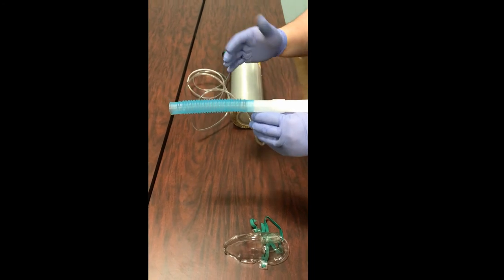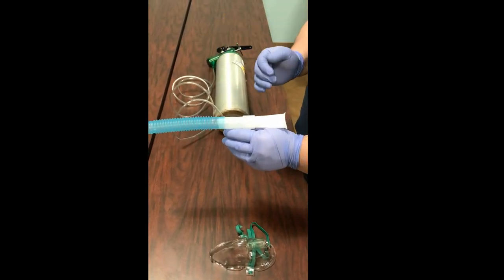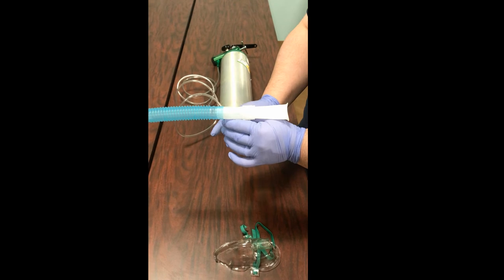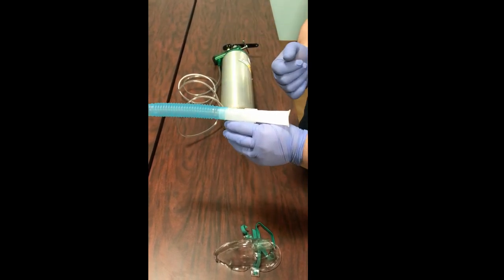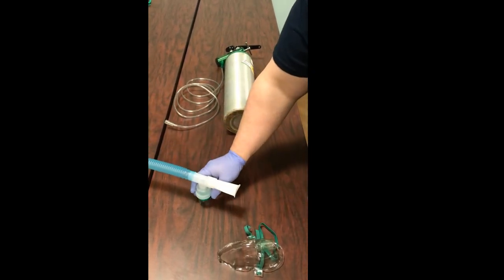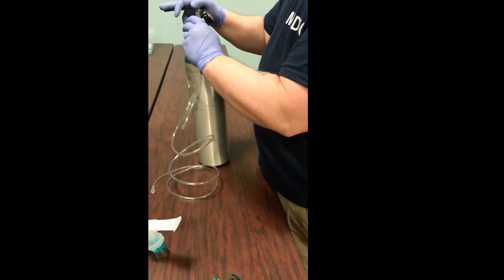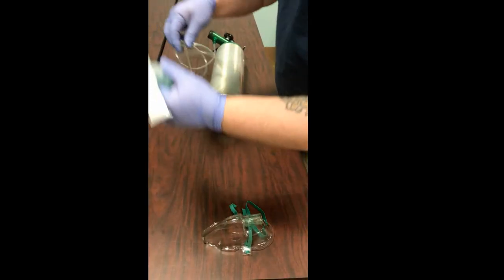Once we attach this to our oxygen tank, we set our nebulizer between six and eight liters per minute — six, seven, or eight would all be appropriate. Any higher and we won't be able to create that aerosolization; the pressure will kick the O2 tubing off. If it's too low, we won't get the aerosolization we need with the medication.